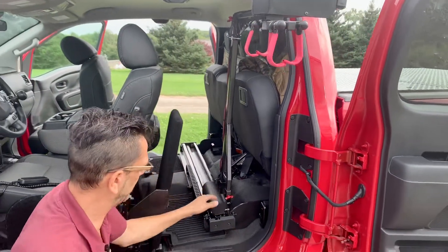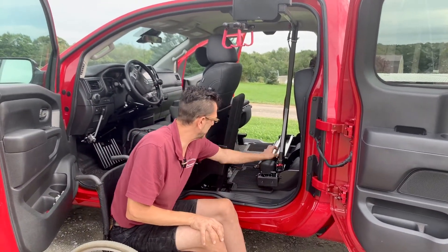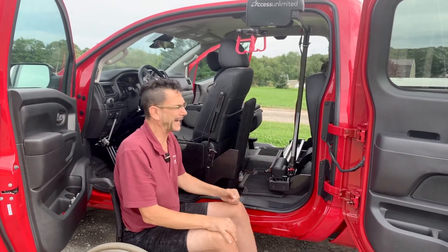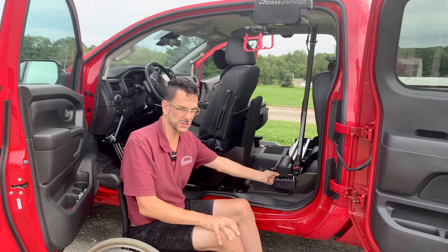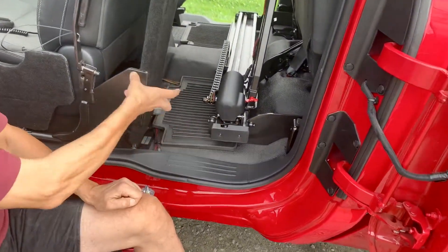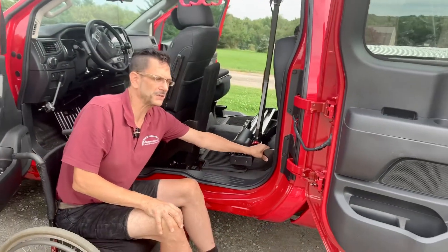The other part of the unit rises up and you can take everything out of there. The only thing left is the trolley, which goes back and forth. In the back, there's a manual backup crank so that you could actually crank the unit to move it back and forth if there should be an electrical failure or your battery dies. Right here there's also a release on the same crank handle that disengages the motor so the unit can slide back and forth freely.